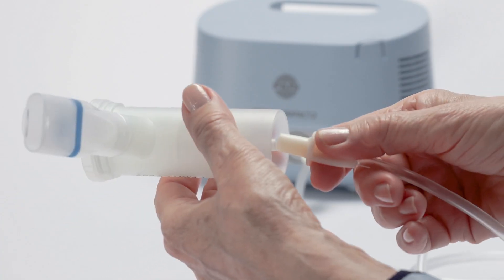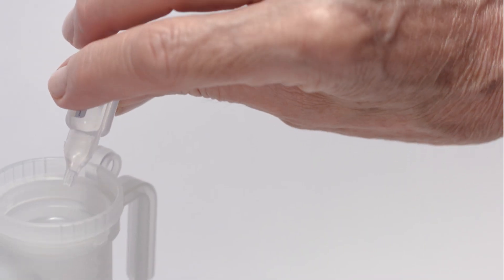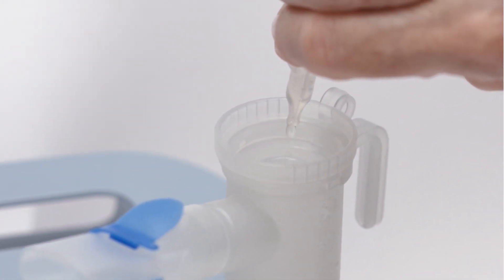Connect the nebulizer and compressor with the connection tubing. Then pour in the inhalation solution.